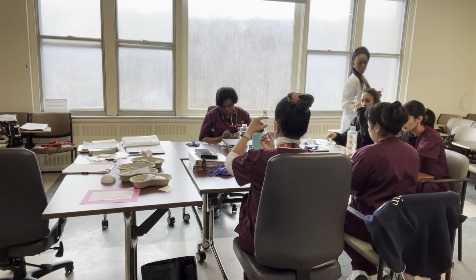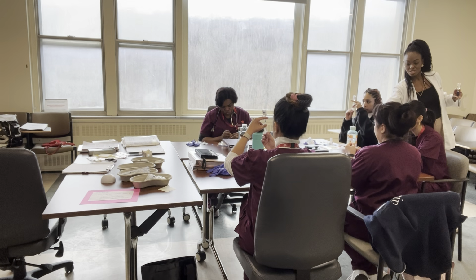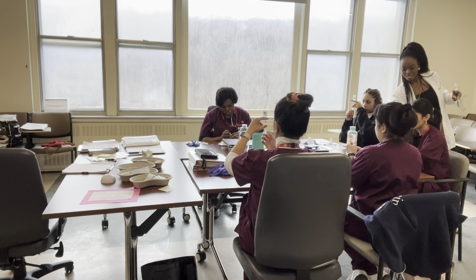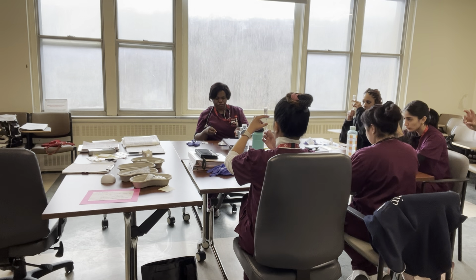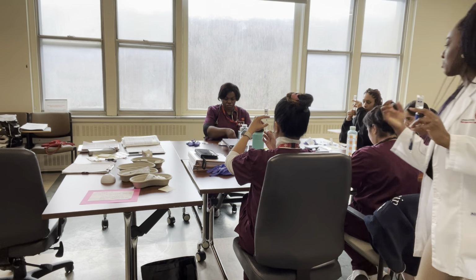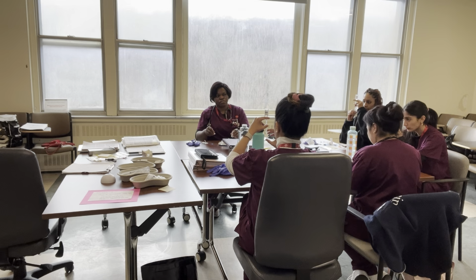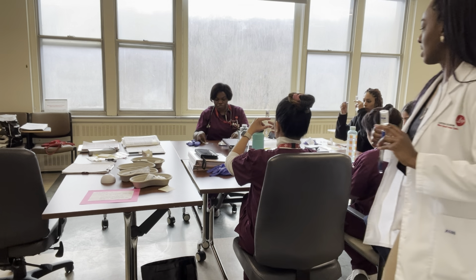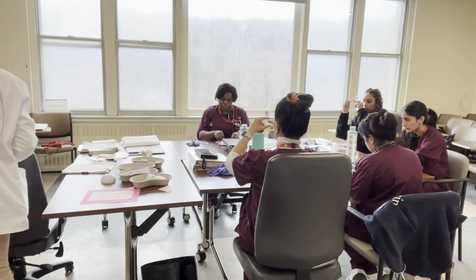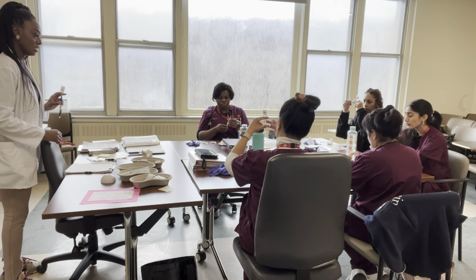If you have a lot of air bubbles, you just push it back in. Your needle is bent, so your vial is not straight. It has to be straight. So keep your hand straight like that. Then get rid of the air, maybe push it back up, and draw up more than you need. Don't just go to the number. Draw up more, check to see if there are any air bubbles, and if there are none, good. You need your finger, yeah.